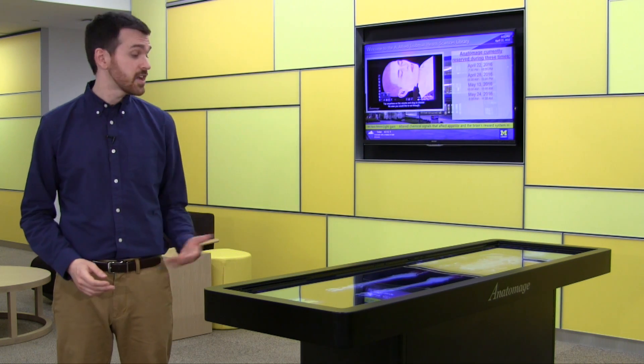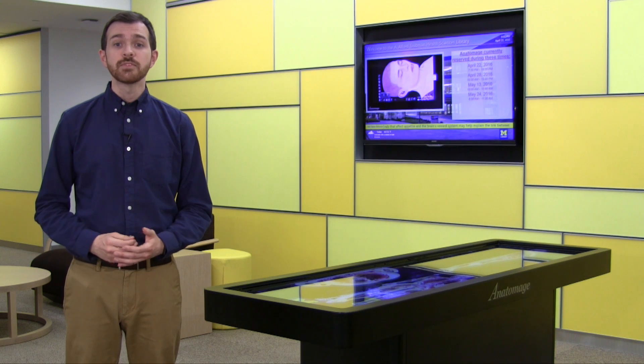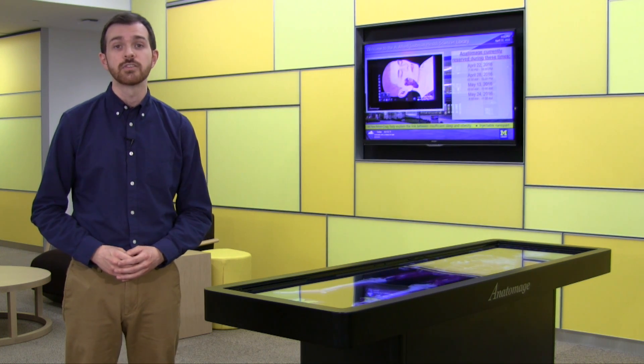Hi, my name is Chase Masters and I'm the Enabling Technologies Informationist at the Taubman Health Sciences Library. Here on the fourth floor of the library we have the Anatomage Table, a virtual cadaver table that allows you to explore real 3D images of the human body and much more. The table was funded through the Transforming Learning for a Third Century Initiative, a collaboration between the UM Library and the Schools of Kinesiology, Dentistry, and Nursing. In this overview video I will demonstrate some of its basic features to give you a better understanding of what it has to offer.